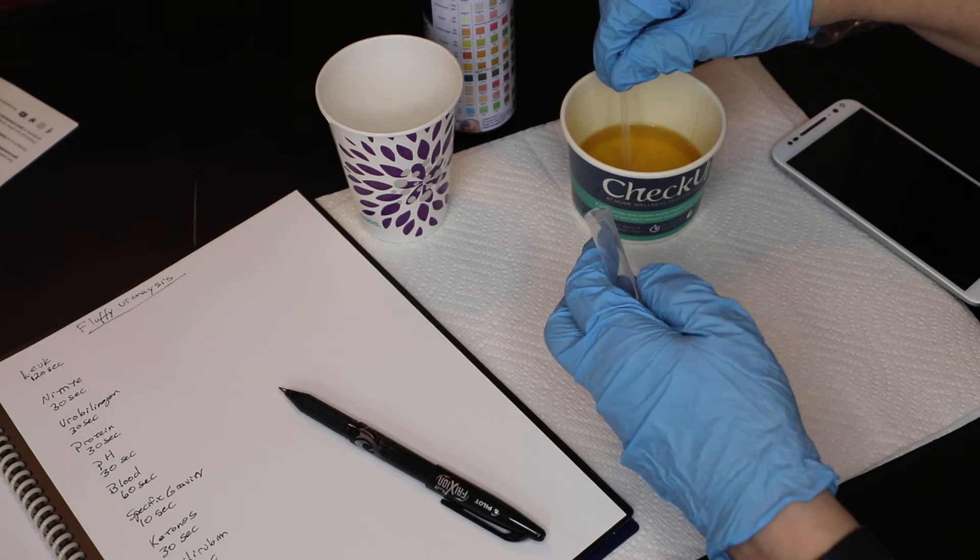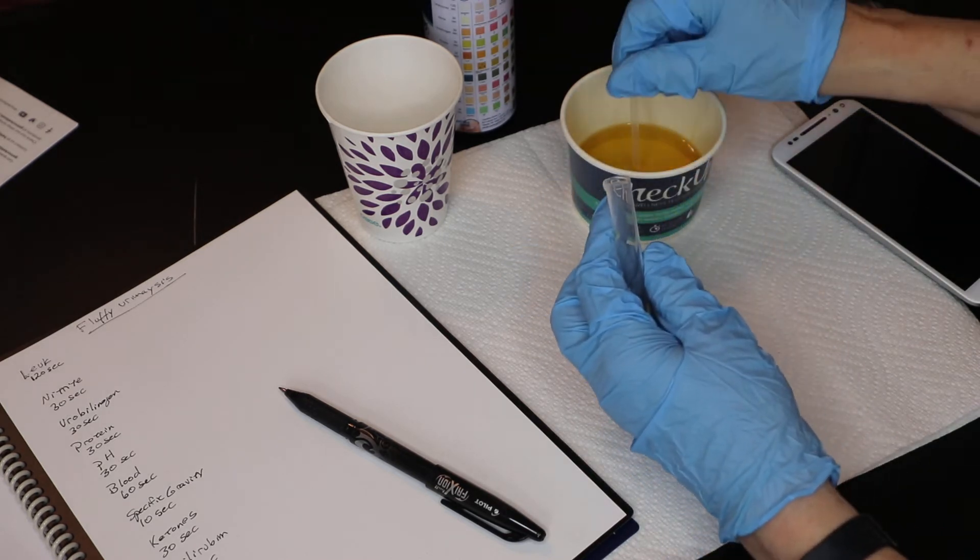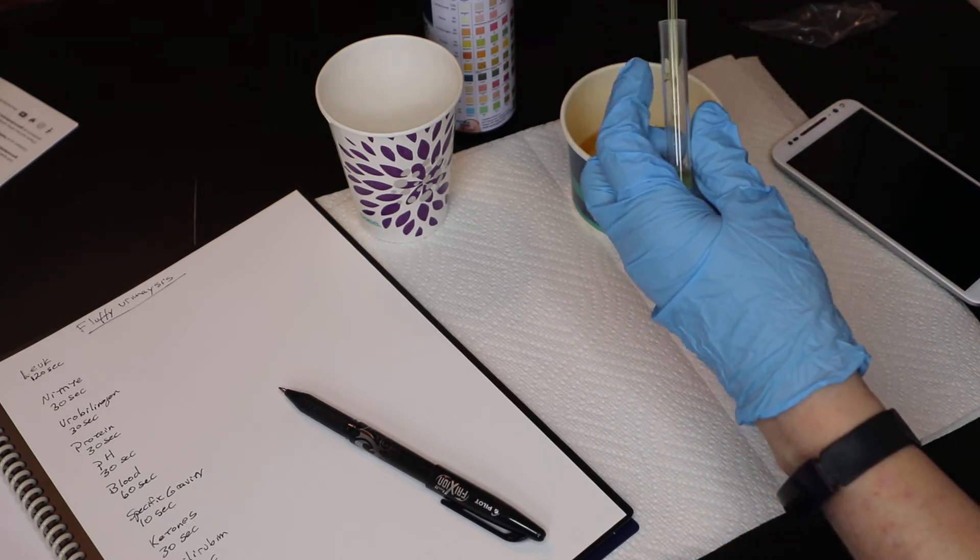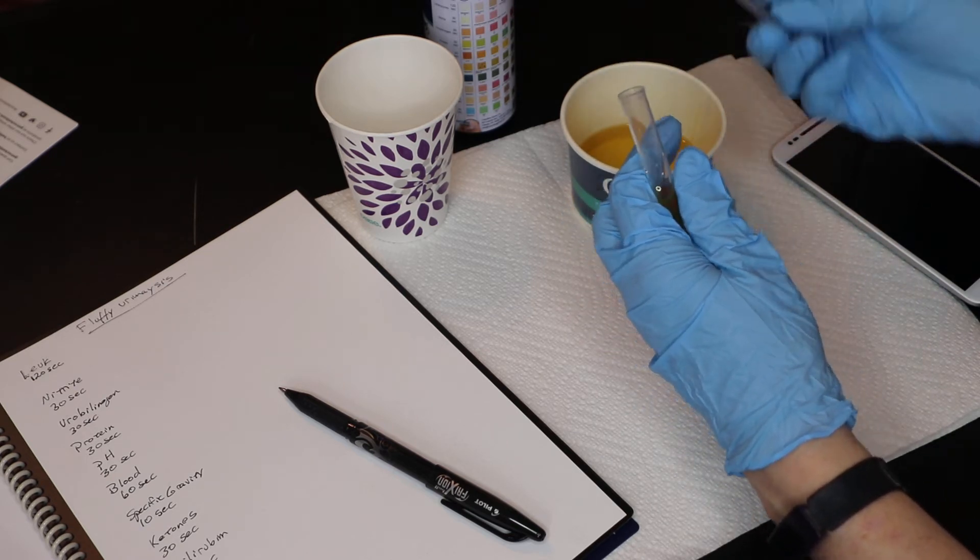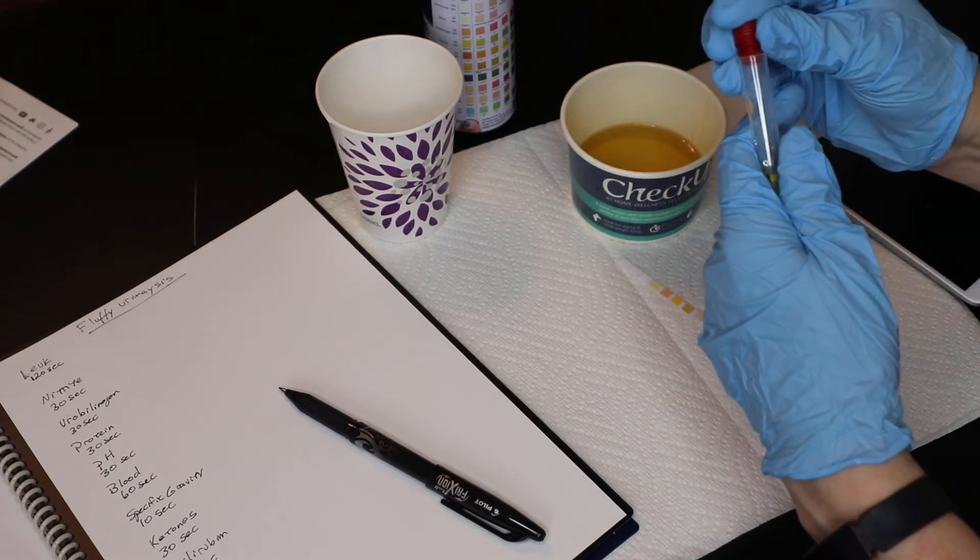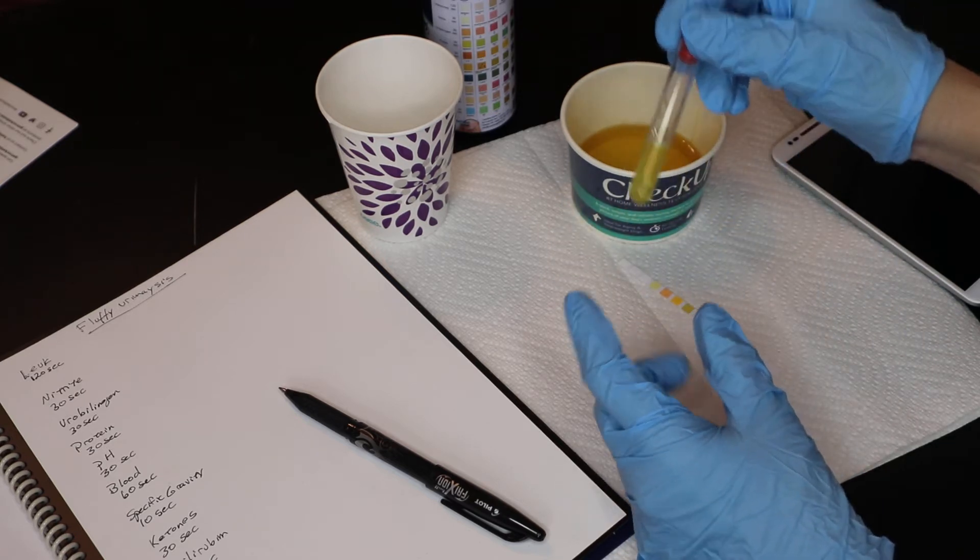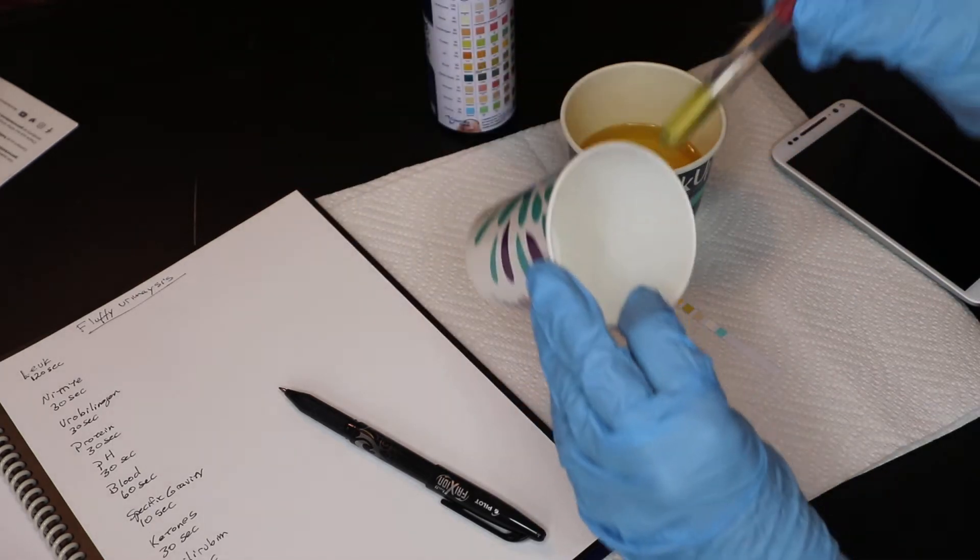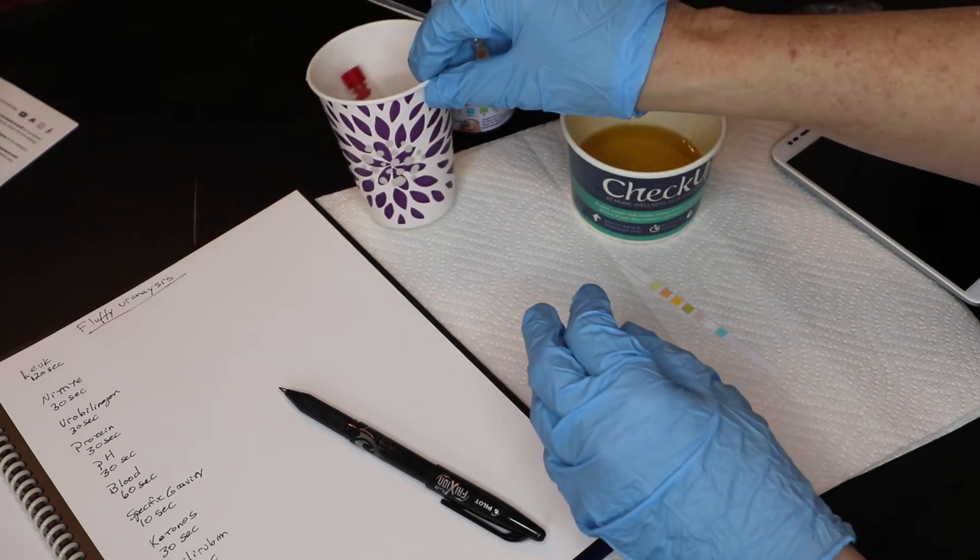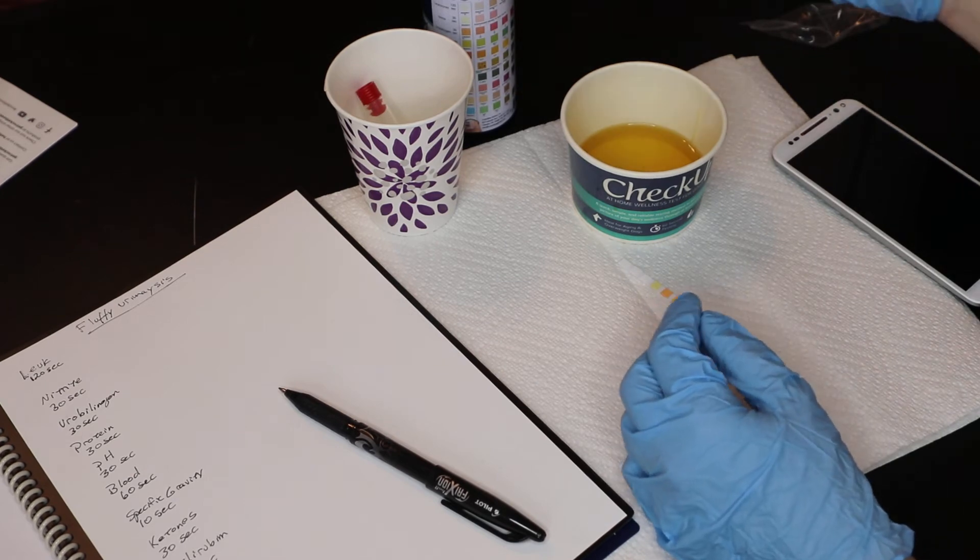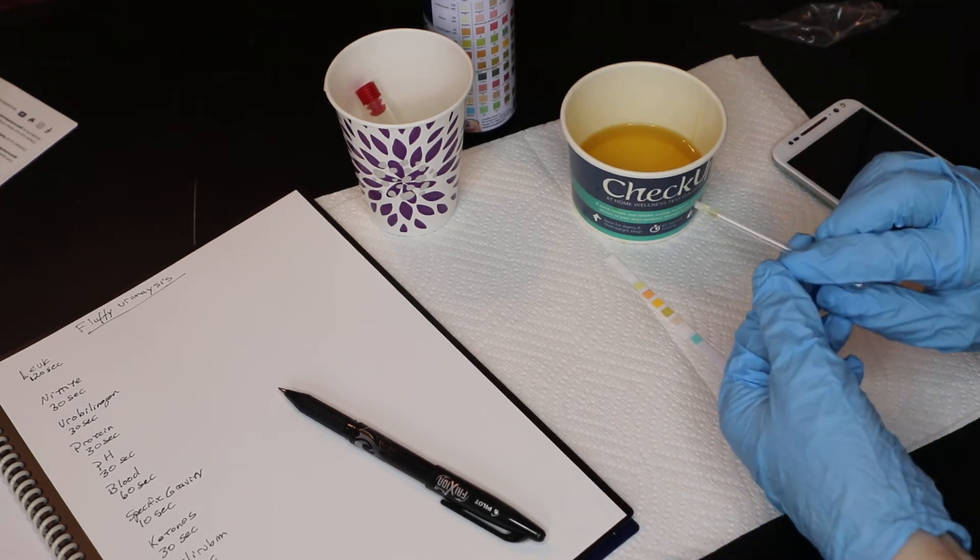You want to collect your urine. And if you're collecting it off of the special litter, then you just pipette that urine right off the top of the litter into your little test tube. You can also save this urine for your veterinarian. If there is something going on with your pet, keep it refrigerated until you can get that to your veterinarian. I'm using a little paper cup here to just hold my test tube. And you can definitely cut those down or use a smaller paper cup if you want to set that test tube in there.